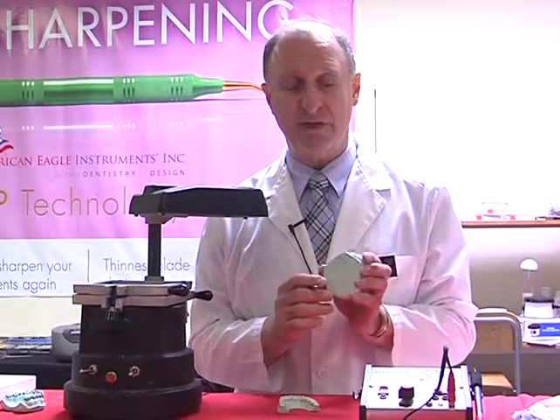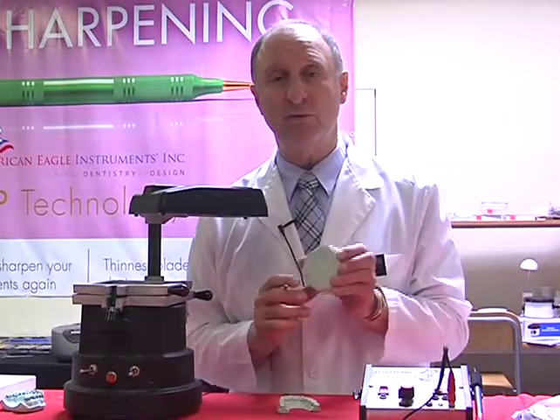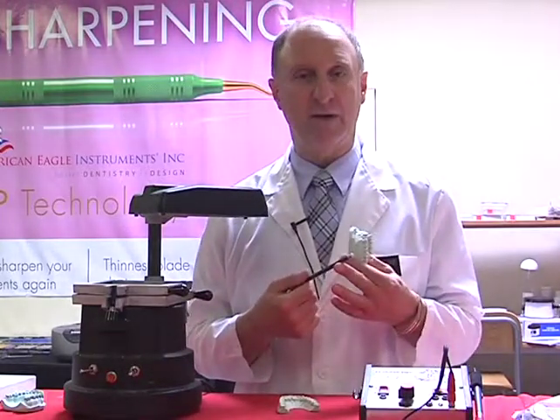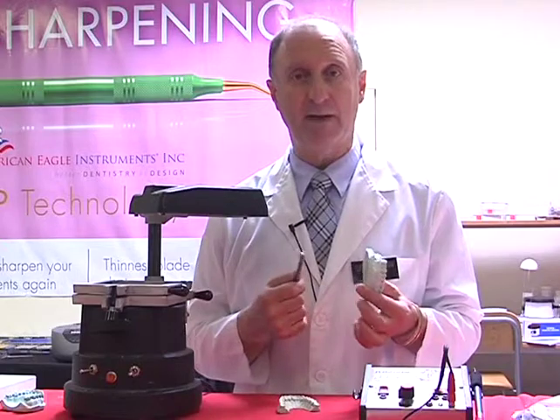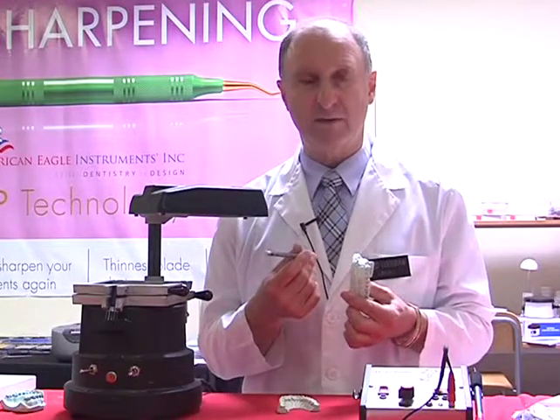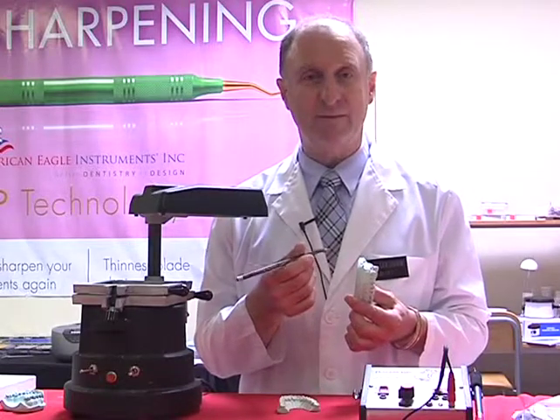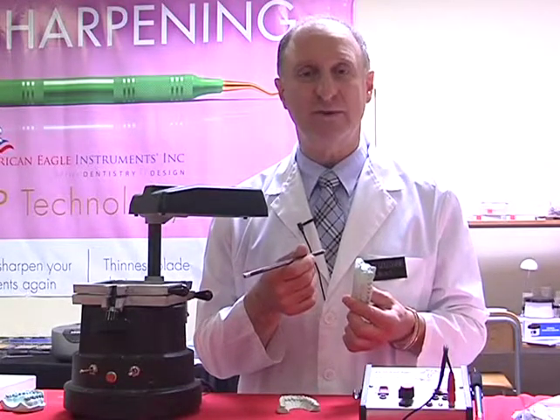So once I've written Mrs. Smith's information, I then put this under a tap, under water, and it stains the surface. It's like, because they call it ink in the bottle, it will actually stain and permanently mark. These pencils run normally around $3 a piece, and this one's a new one I've just opened up, but they normally last about 2 to 3 years.